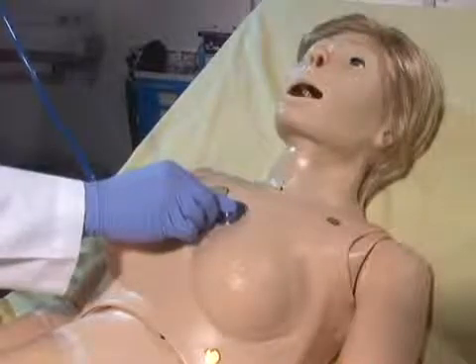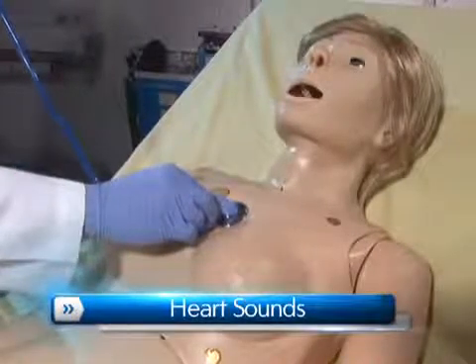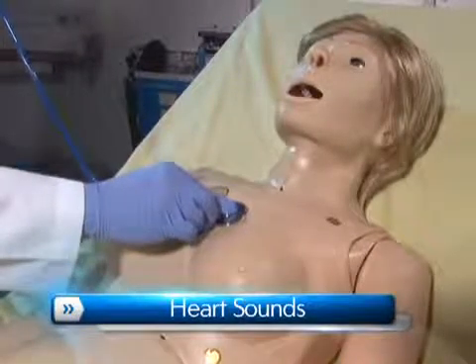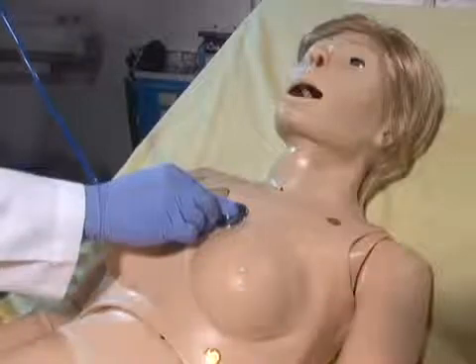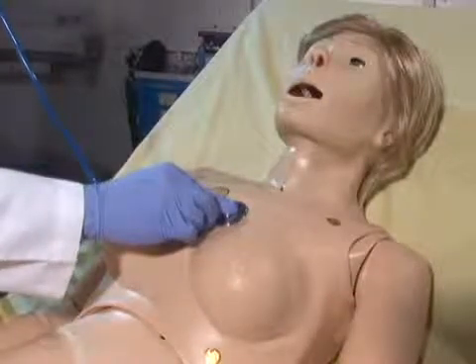Suzy is equipped with several realistic heart sounds, which are tied to a user-defined heart rate and selectable rhythms.